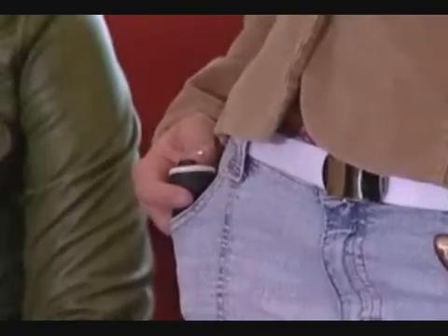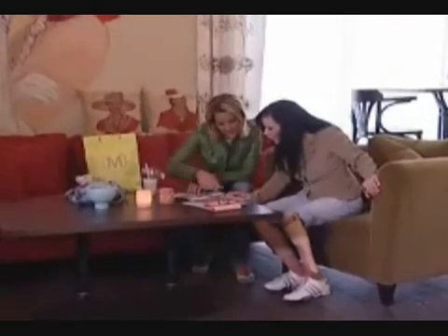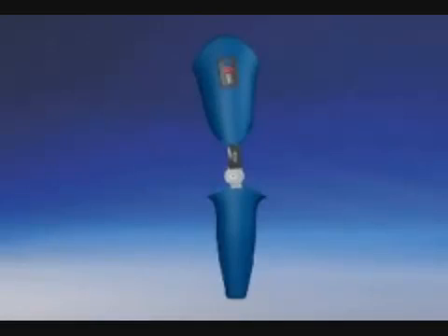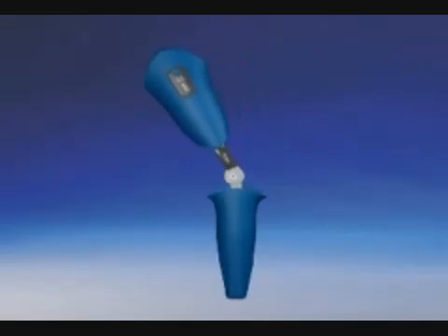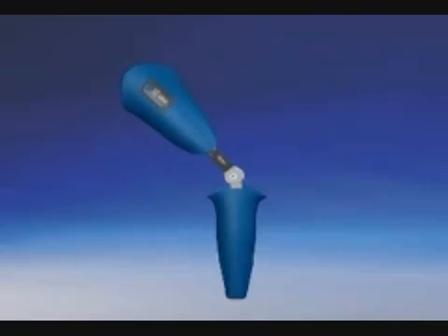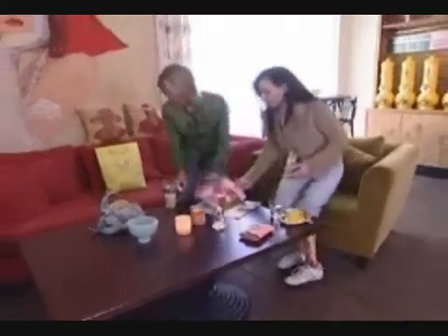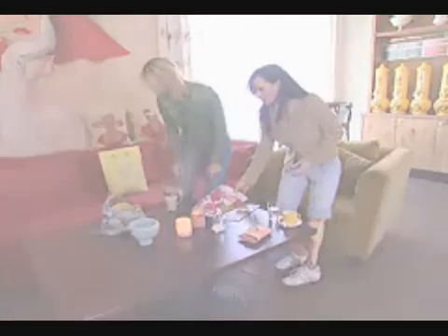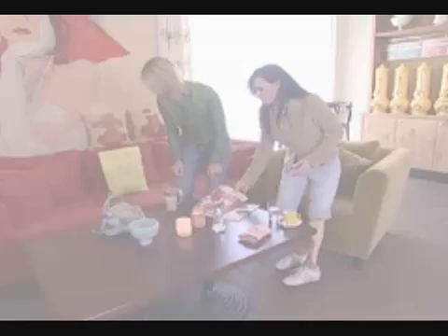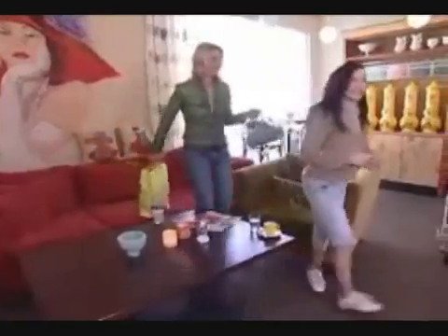A remote control enables the user to secure his body with both hands before the joint is unlocked. A feedback system simultaneously sends sound, light, and vibration signals to the patient to indicate the mode of the joint that he wants to bend in order to sit down. This feedback is also of great importance when the patient stands up again. The system sends a signal to the user as soon as the joint is completely locked in the stance position, so the patient may start walking freely without having to check his orthotic joint again.